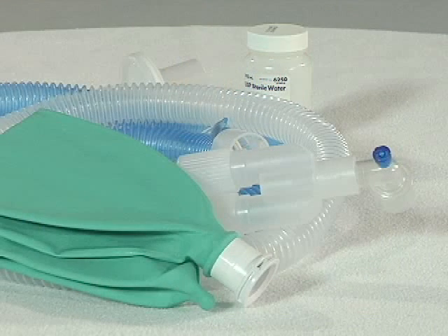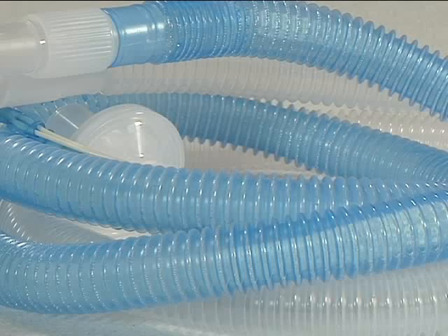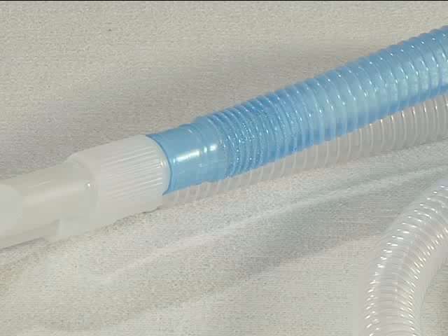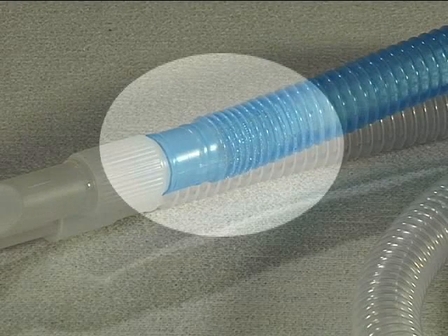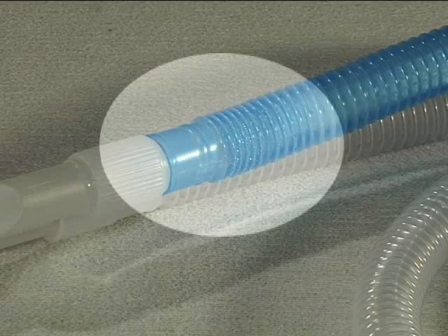Note: the heated wick circuit will remain at a constant temperature regardless of flow. If you preheat the system, condensation will form along the inside of the tubing. This condensation is a gauge or indication of the need to add water to maintain humidification. As the water in the wick circuit is depleted, the condensation will slowly dissipate beginning at the machine end of the circuit. When the last 8 to 10 inches of the breathing circuit shows condensation, additional water should be added.